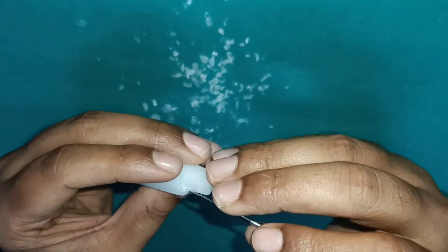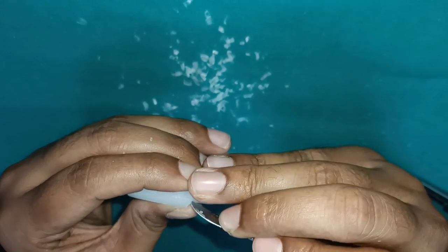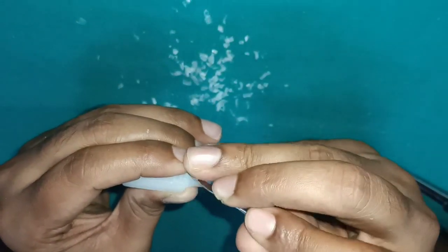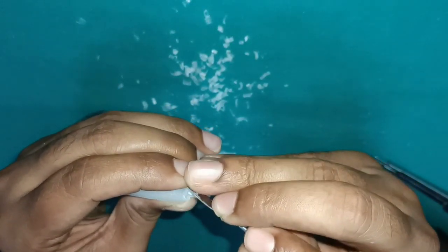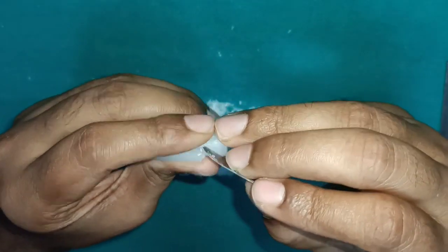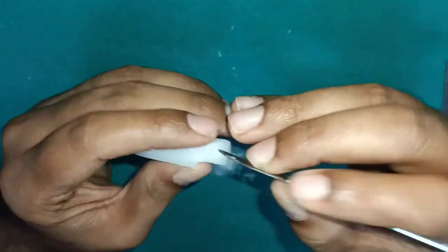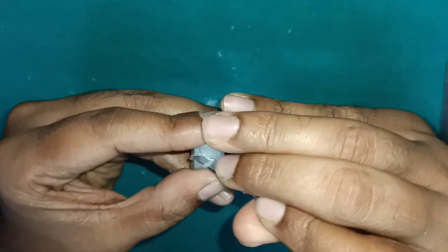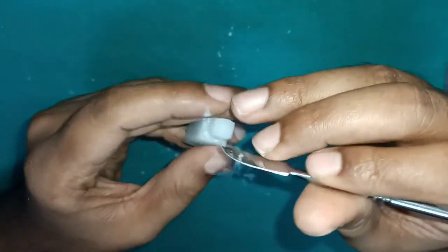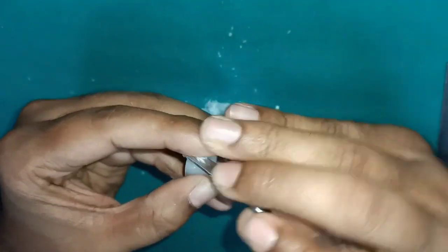One small technique I always tell in every carving: carve the cervical 1/3, defining that area away from the remaining wax block, for betterment of the work. Your future cervical line will automatically be carved in that, so you will get a good finish. After that, using this tip of the carver, you round off the cervical 1/3 and start carving from the cervical 1/3.